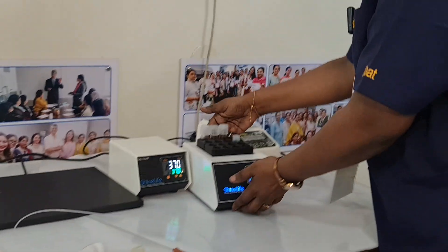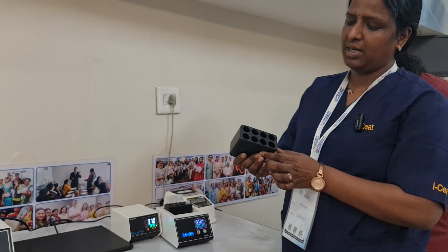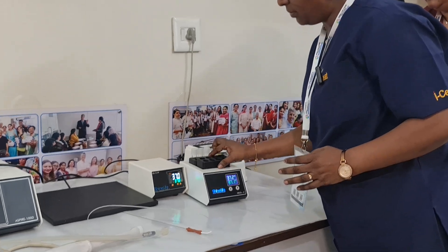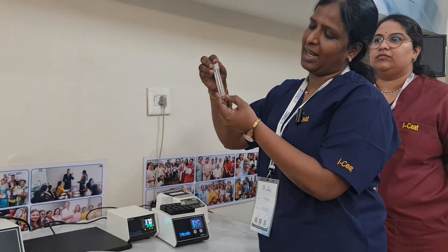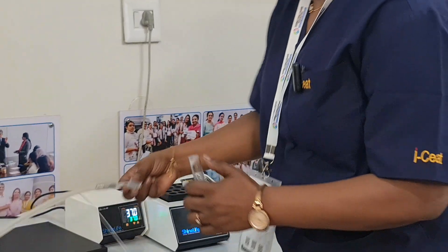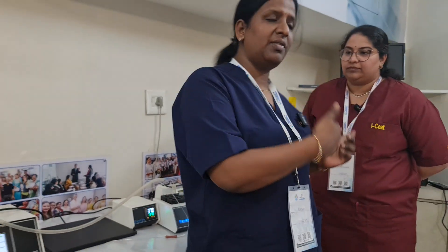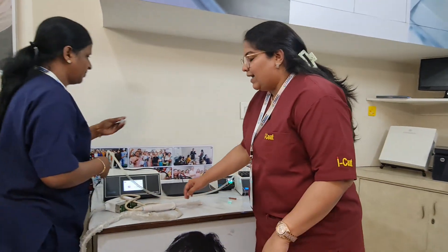The last and most important thing is the heating block. This is the one — it has sixteen slots here. These are the main test tubes, which are 14 ml with graduations. The tube goes in and attaches like this and we keep it like this. The procedure will now be explained by my colleague Dr. Pratyusha.